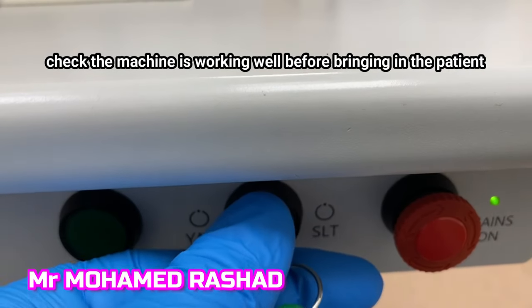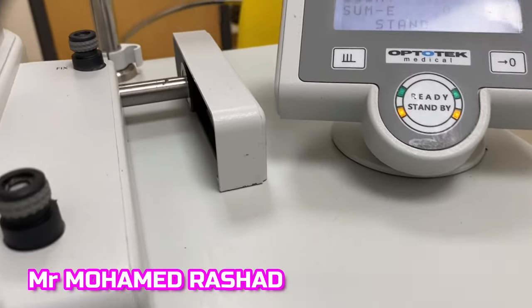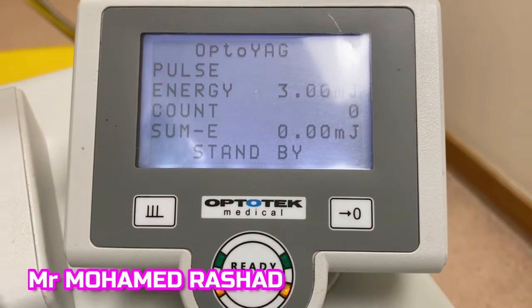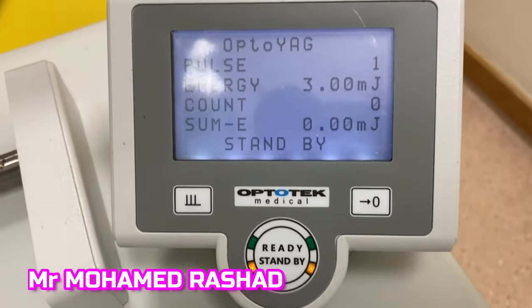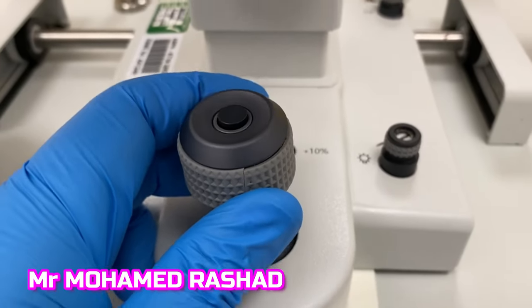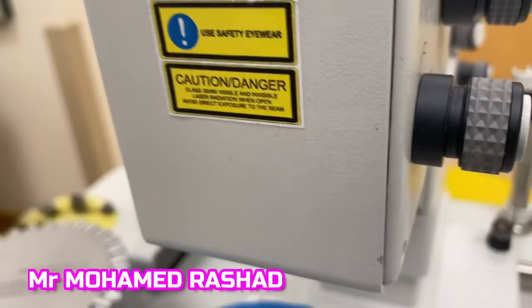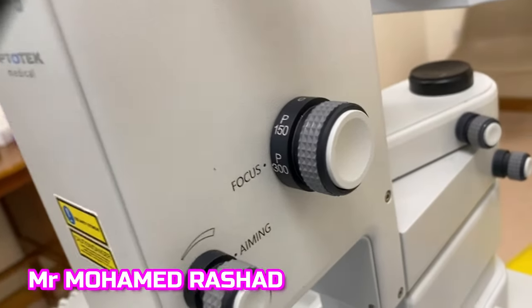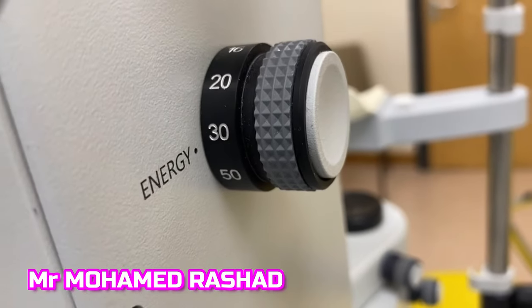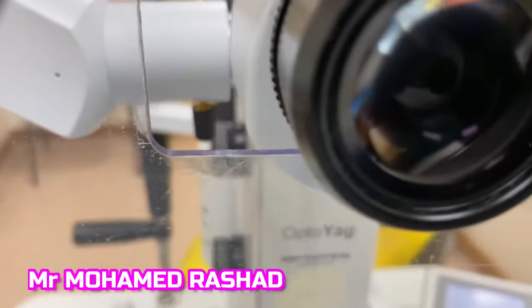Make sure the machine is working well and is on the correct YAG mode. Check the settings: one pulse per burst, and for energy I advise starting with 3 millijoules. The joystick and the button for firing the laser are on the top of the joystick. Make sure the defocus is set posterior by about 300 microns — you can use 150 but I advise 300 in the beginning. The energy knob is on the sides as well.